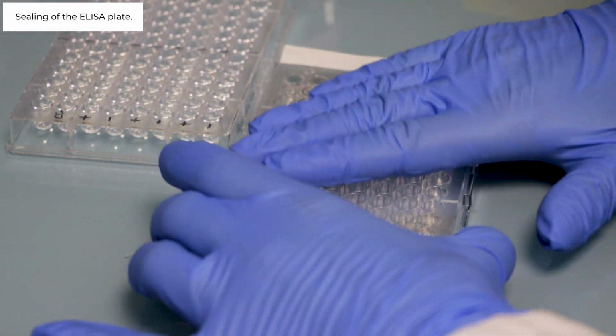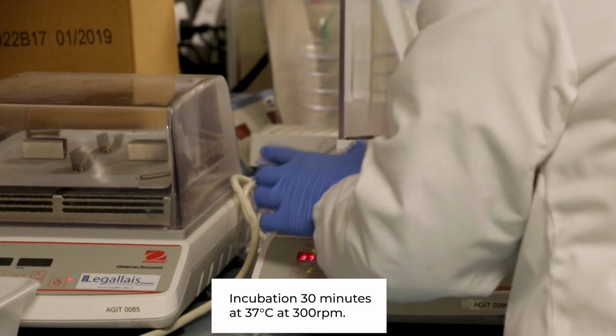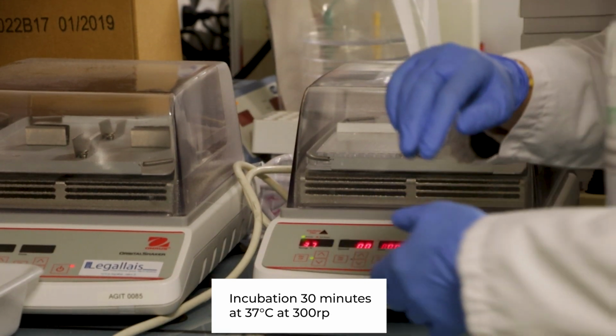Sealing of the ELISA plate and incubation 30 minutes at 37 Celsius degree, 300 rpm.